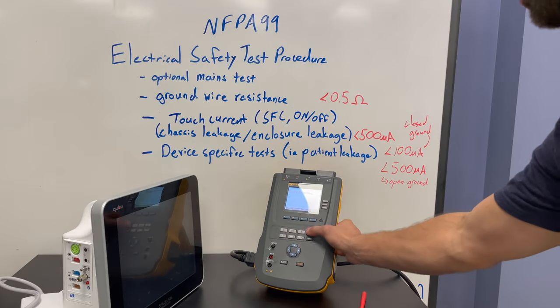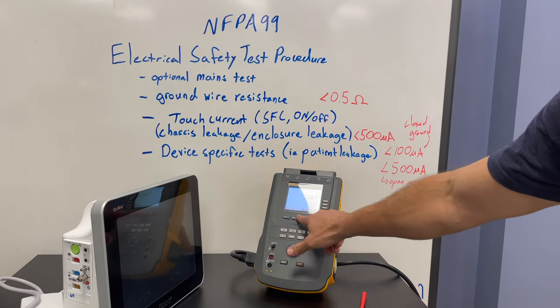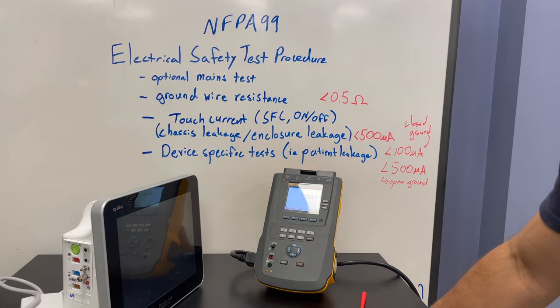As normal, you can check the line. To me, this is actually a worse display than the 609 because it only tells you one thing at a time — you have to click and cycle through each test. Why not put all that information on the screen? It's a poor design decision, but not that big a deal.